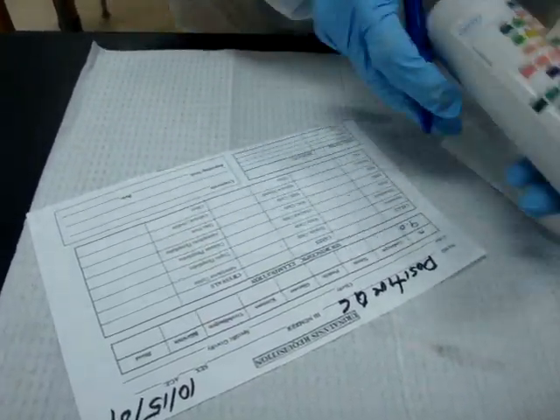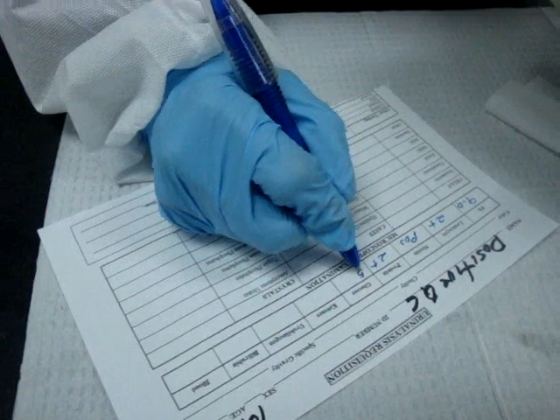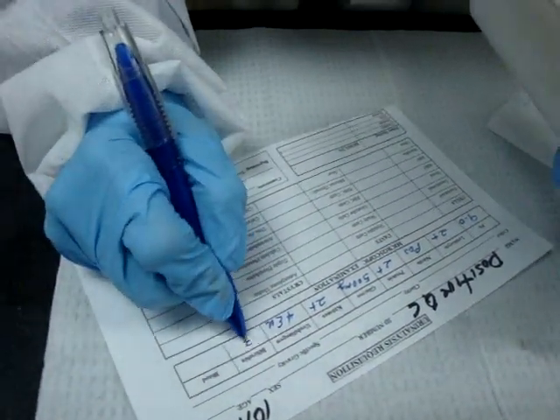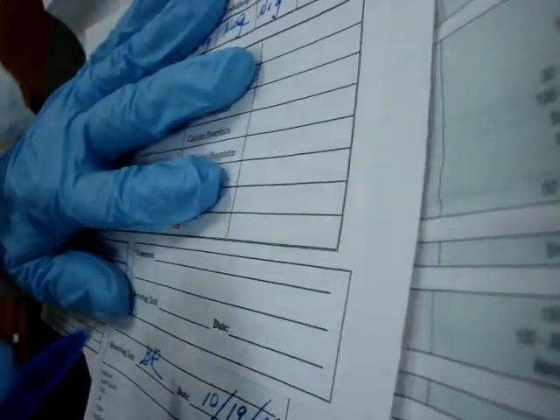Let's write down our results. The pH was 9. The leukocytes are positive — it's a two plus. Nitrites are reported only positive or negative, so they are positive. The protein is two plus. The glucose was 500 milligrams. Ketones were two plus. Urobilinogen was 4. Bilirubin was three plus. And blood was three plus. Now we will compare the results that we got with the results we were expected to get from the brochure. Then we always want to sign our work and date it, and sign our level one and date it.